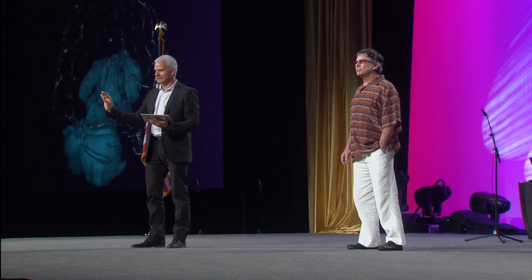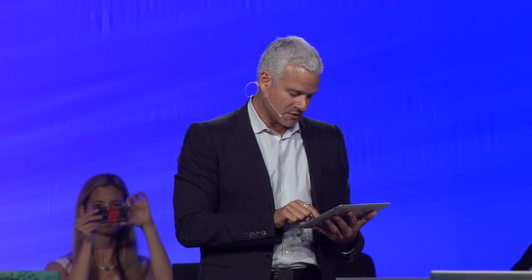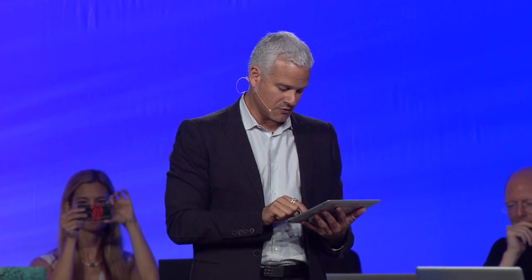What we're going to do now is show you the rhythms of Mickey's brain superimposed on his brain in real time. That's our goal. Let's try this out. So let's show you alpha rhythms.